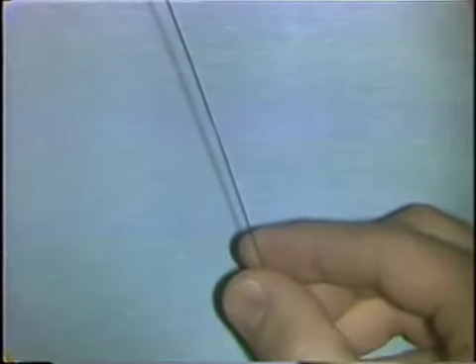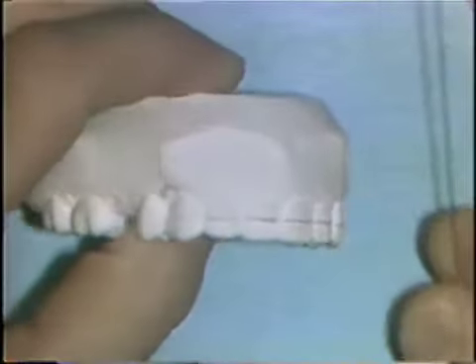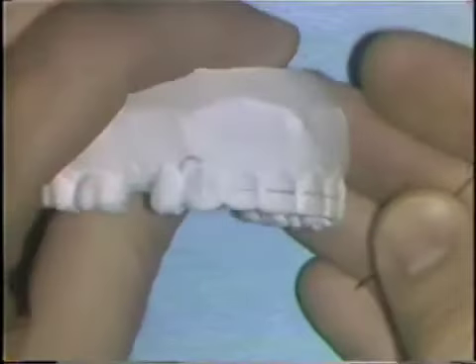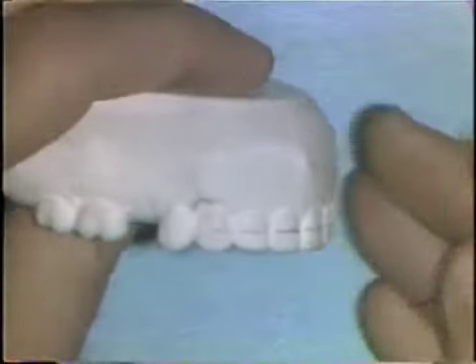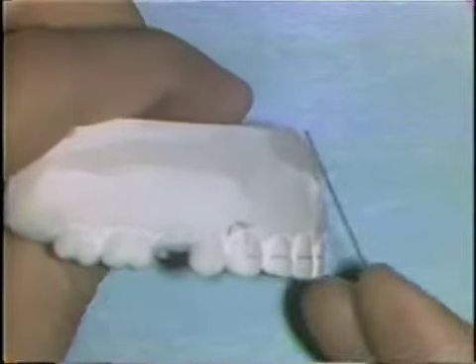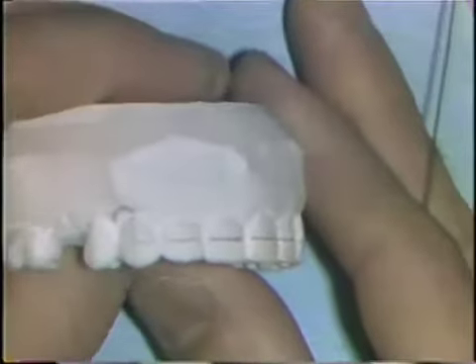The first step in construction is to make a pencil outline of the wire framework on the work model. The size of the loops is indicated and the position of the labial wire is indicated also. Trimming the base of the model away helps the wire adaptation in that you can approach the wire bending from all four directions.